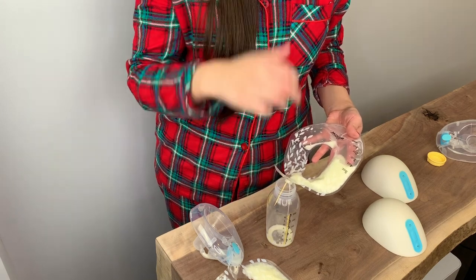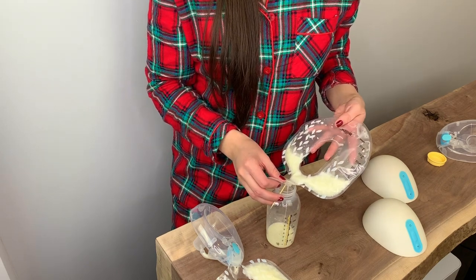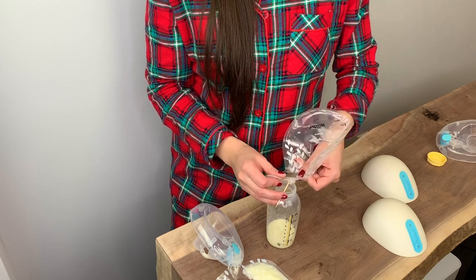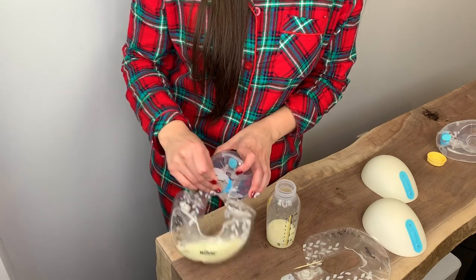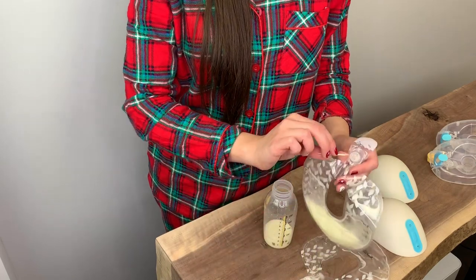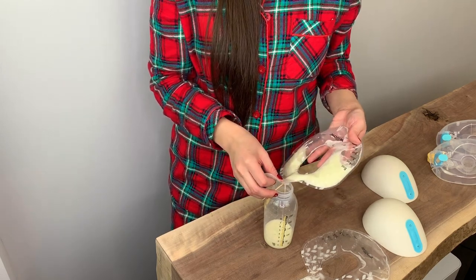It's going to take patience — the first time I did this I spilled everywhere, but after a couple of months I'm a pro. What I do is push down with two fingers to remove all the milk from one side, then the other. The reason I don't have much milk right now is because I pumped less than an hour ago. Again, empty the flex tube, grab the toothpick, insert it into the peanut-looking part, and pour — just don't press too hard or you'll pierce the bag.